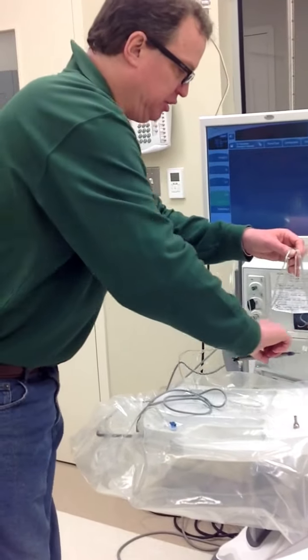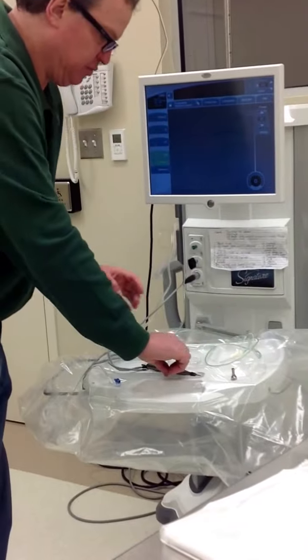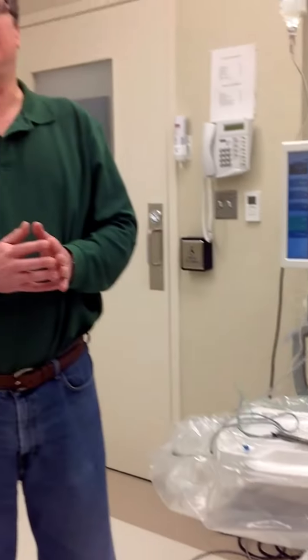Yes. Generally speaking, the only reason you would disconnect the vitrector is if the doctor wanted to do cortical cleanup with the IA handpiece. The issue with that is that with no cutting action, if vitreous presents, you're going to put tension on it and you may get a retinal detachment.